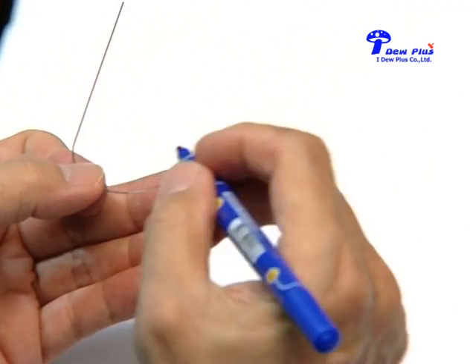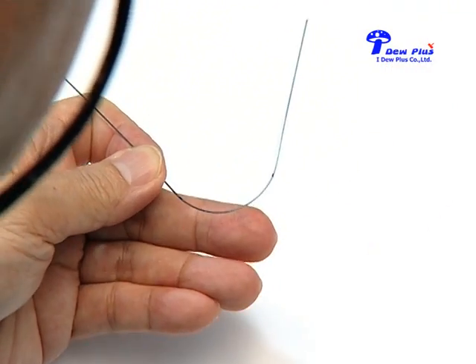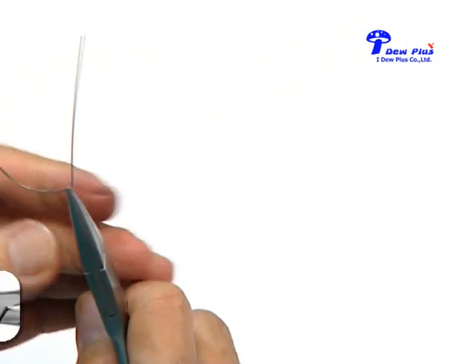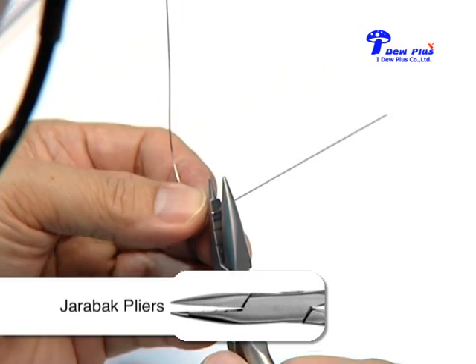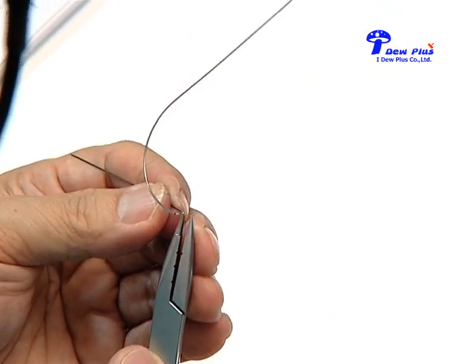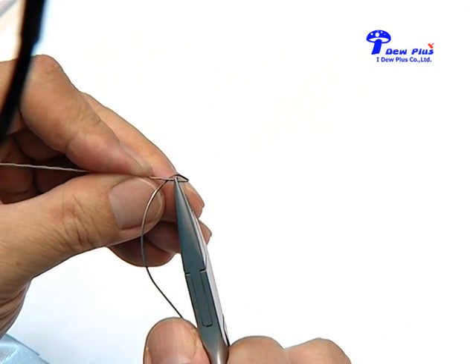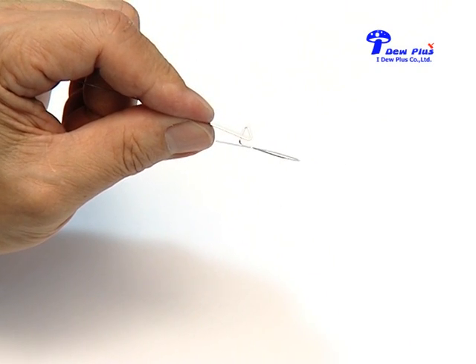We will start with marking at 2A and 2B. This is composed of a delta loop — a double loop together. First, bend 90 degrees up, approximately 6mm up. Then bend the first delta, 3mm down, and go back. So the first delta is formed.